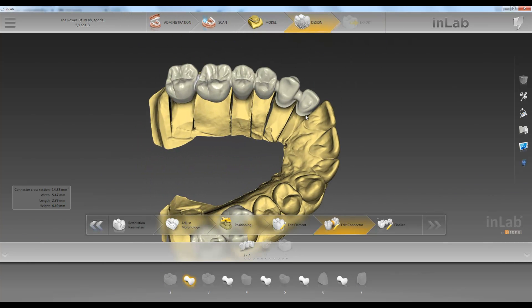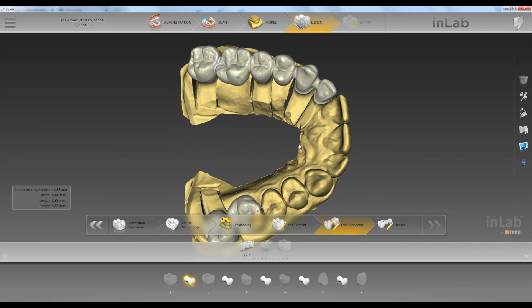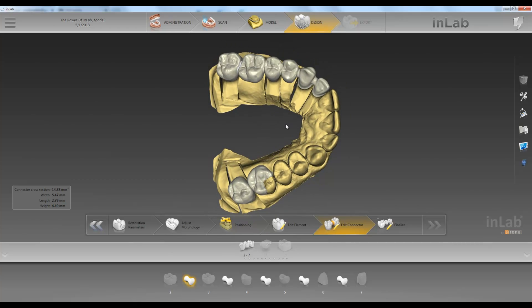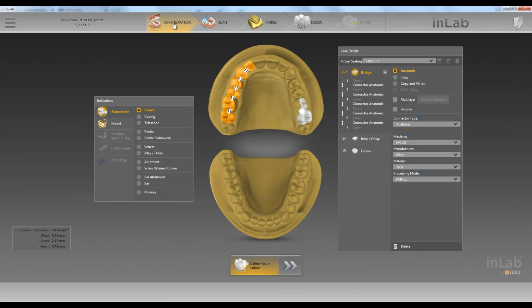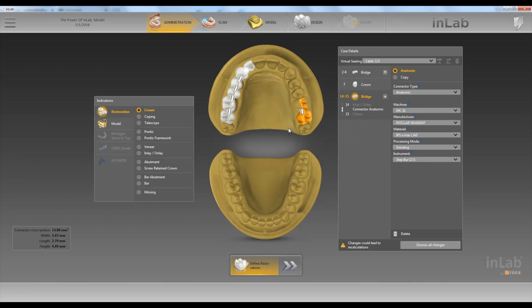Let's say we decided we wanted this one to be a single unit and this one to be a bridge — or a splint. So we'll go back to administration. We're going to make this one a single now, so we click it until the connector field is empty, and we want this to be a splint with intersecting connectors.